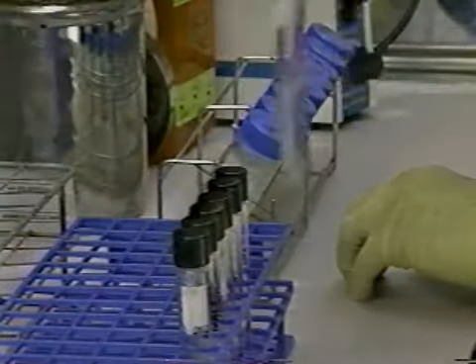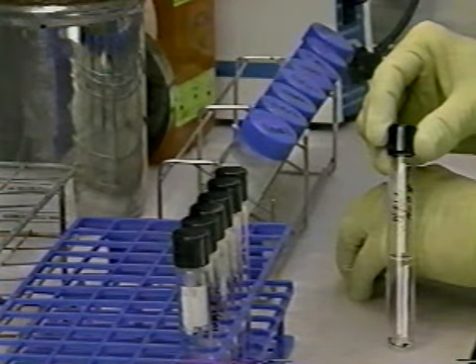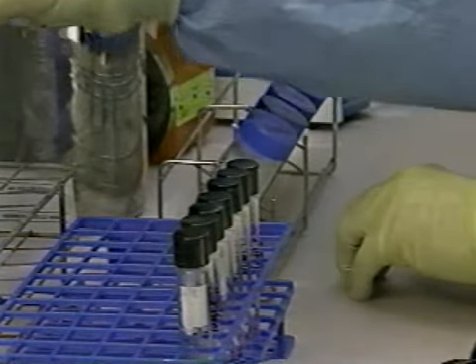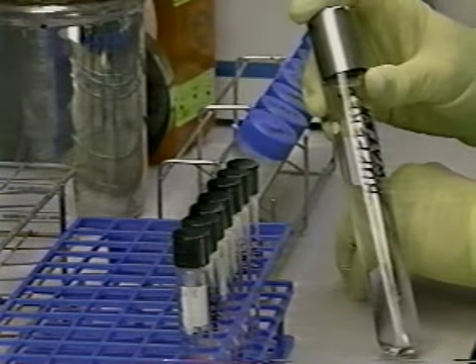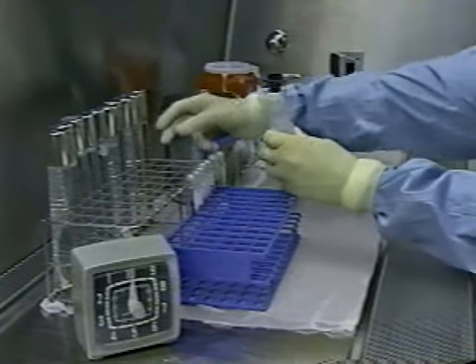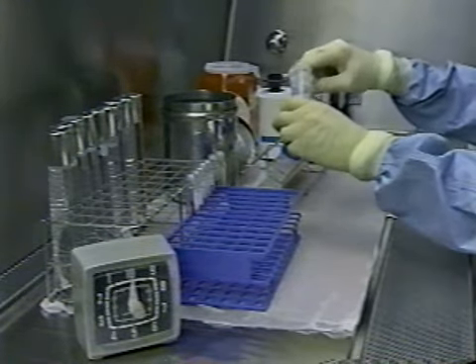One way to avoid this type of cross-contamination is to pre-dispense your reagents into single-use volumes. For example, digestant, approximately 10 milliliters per container. Buffered water, approximately 50 milliliters per container. In summary, it is critical that no mechanism exists for one specimen to contact another.